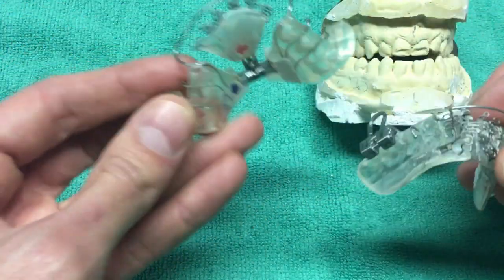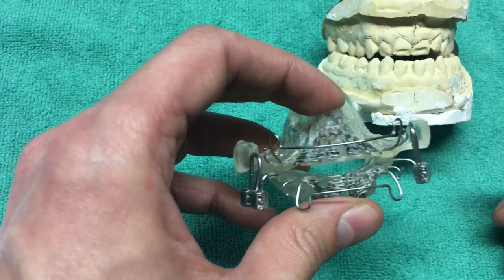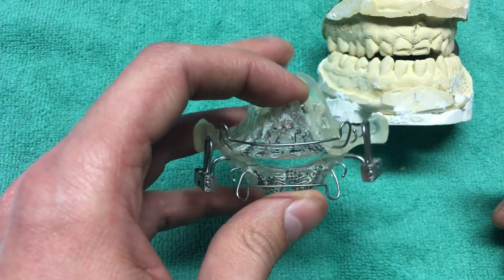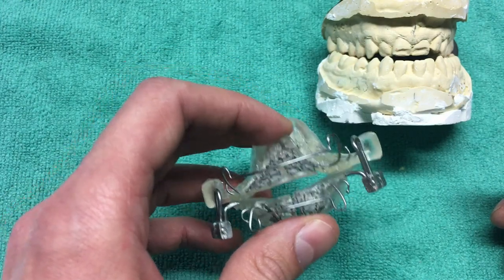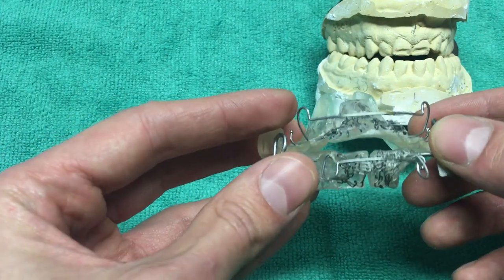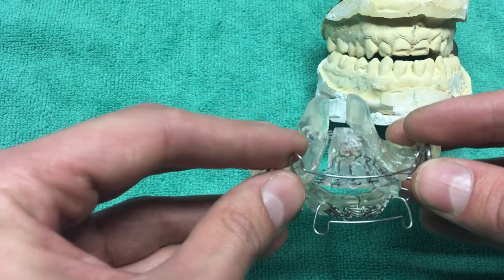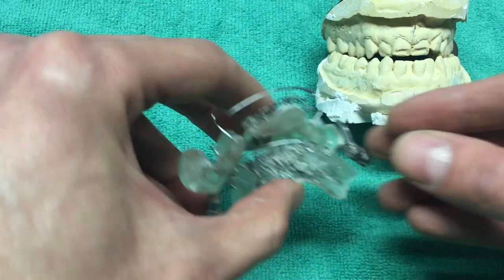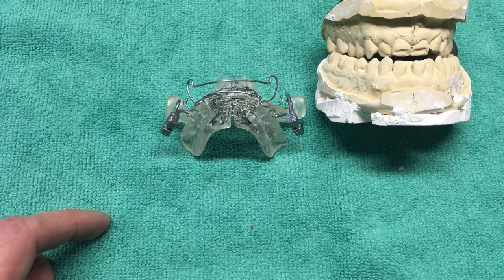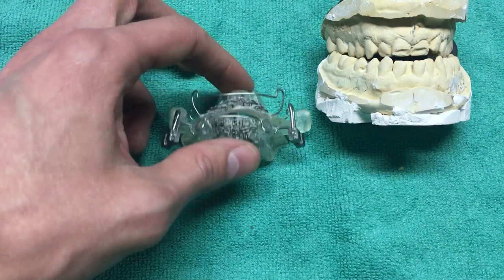These things are made from impressions, and that's what started the whole process. I had to wait four to six weeks to receive them. They take a 3D scan and also impressions to measure airway volume and all that — it's quite an in-depth report about skull structure and distances from points in the skull and jaw. I can certainly go over that in a separate video. I got that report a little earlier than the appliance itself.